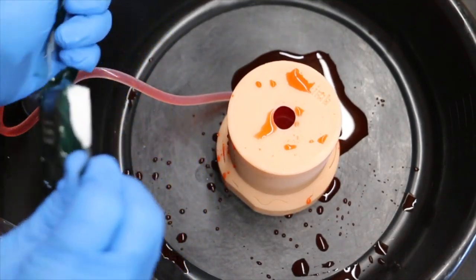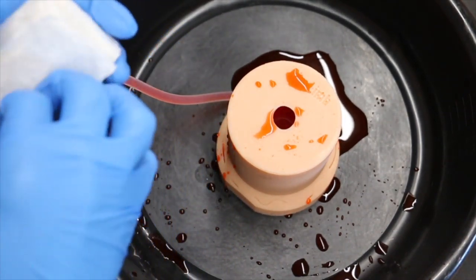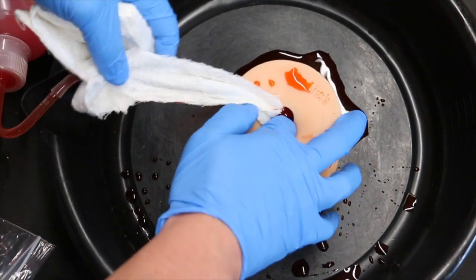All right, so since we have the simulator full of blood, let's go ahead and practice our wound packing here. Trying to make a mess.